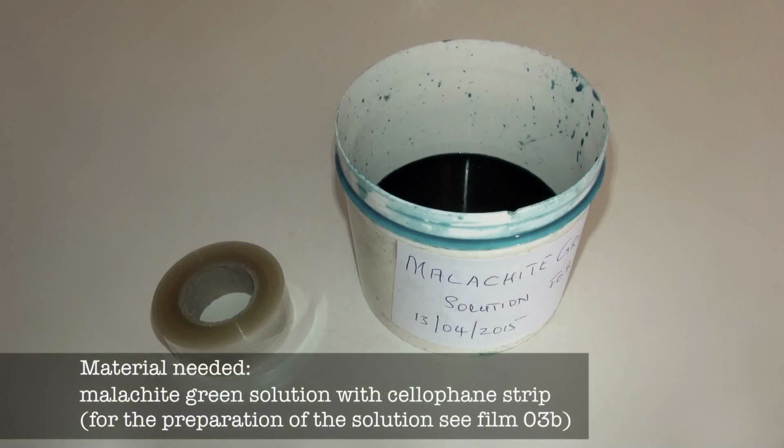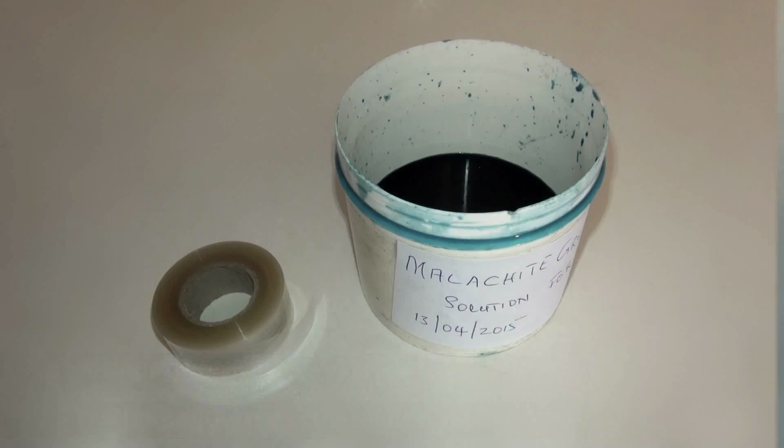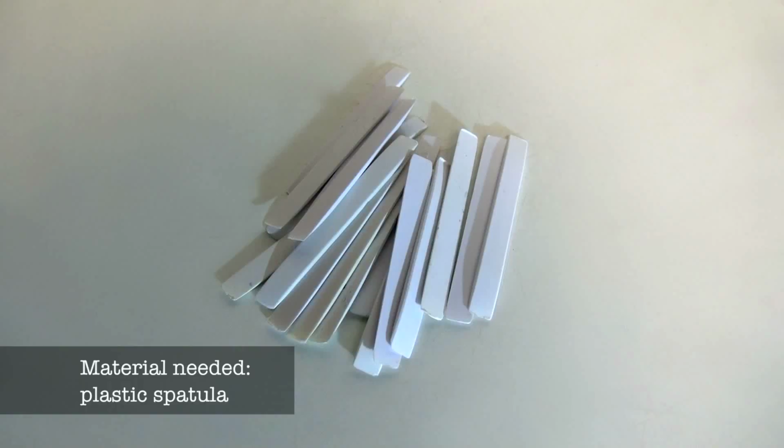Malachite green solution to soak cellophane strips. If this solution is not available, it should be prepared according to instructions in the film 3B of this series. Flat-sided plastic spatula to collect filtered feces.